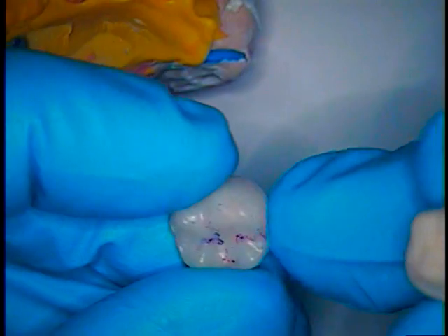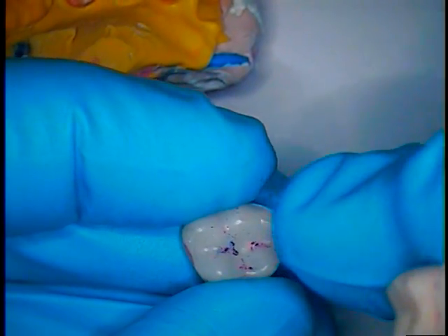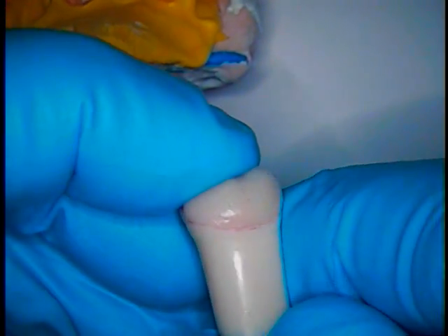Now this is the acrylic crown that is made in class by hand, and notice it has all the marks for contacts, occlusion, as well as margin. So this is the final temporary acrylic resin crown as it fits the typodont tooth.